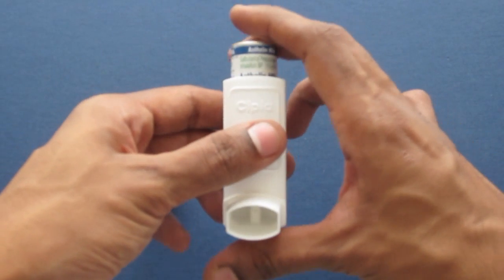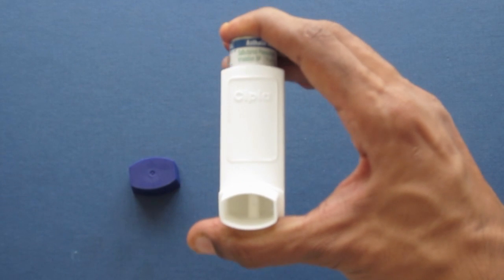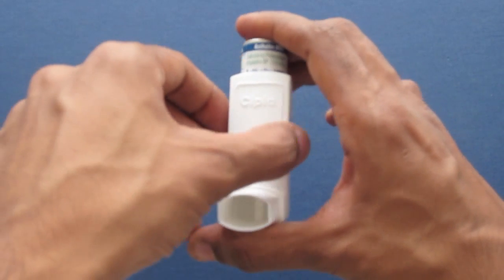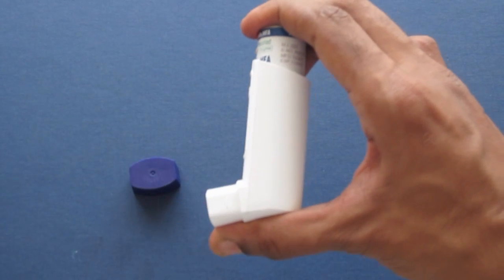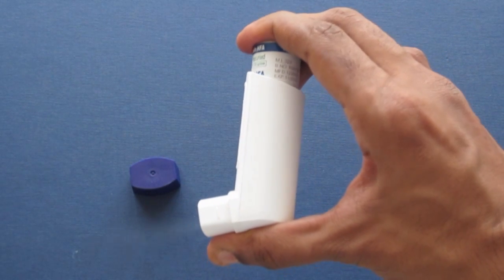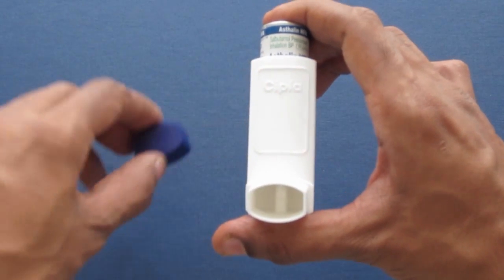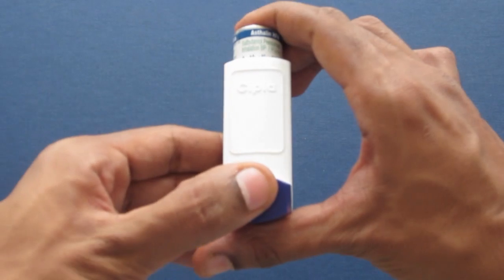MDI atau metered dose inhaler adalah alat yang mengandungi ubat dalam bentuk gas. Penggunaan MDI memerlukan koordinasi, iaitu dengan menekan MDI dan juga menarik nafas yang dalam. Adalah amat penting untuk mengikut langkah-langkah yang betul supaya ubat dapat sampai kepada paru-paru.